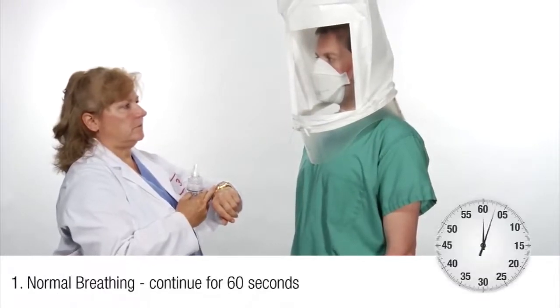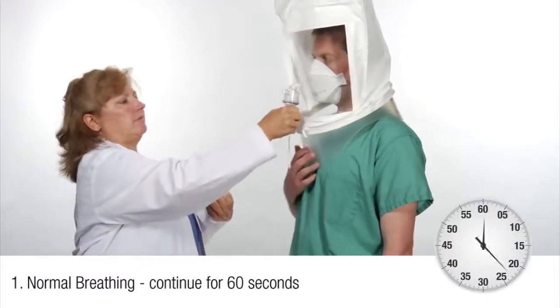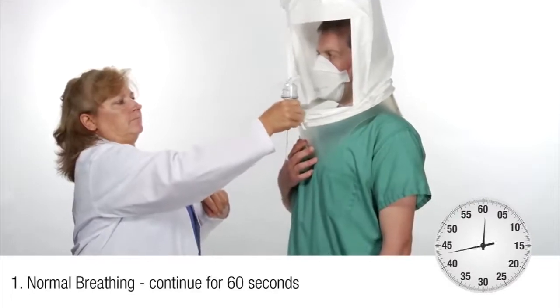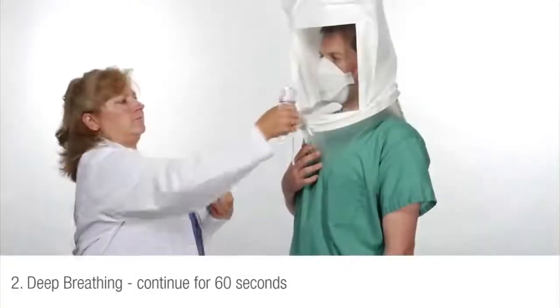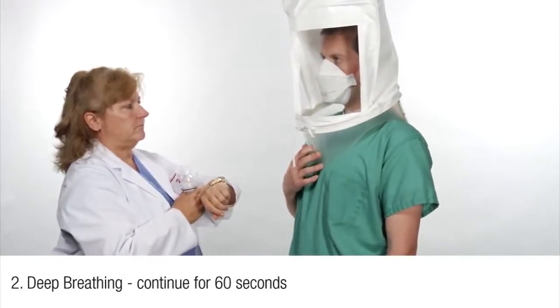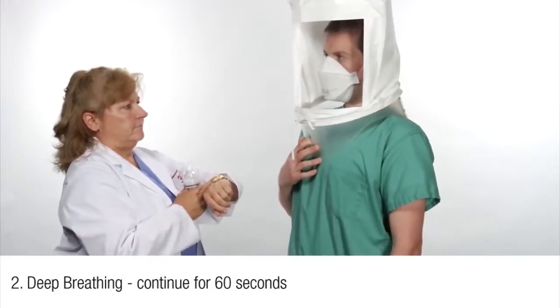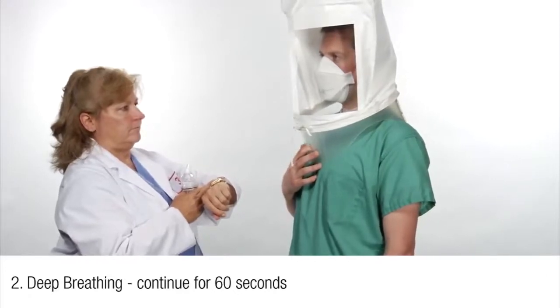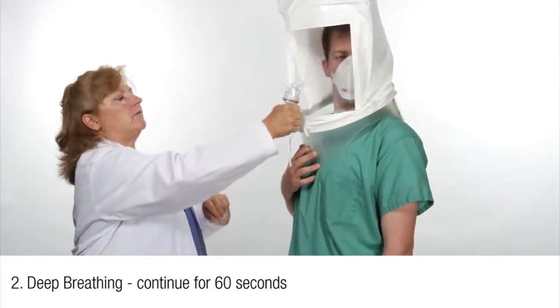First, in a normal standing position without talking, the subject shall breathe through their mouth normally for 60 seconds. Second, in a normal standing position, the subject shall breathe slowly and deeply through their mouth, taking caution so as not to hyperventilate. Continue this for 60 seconds.